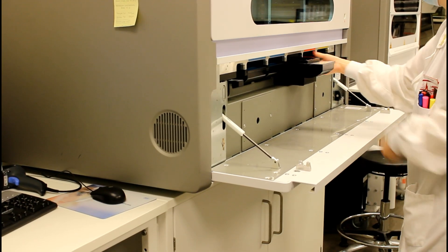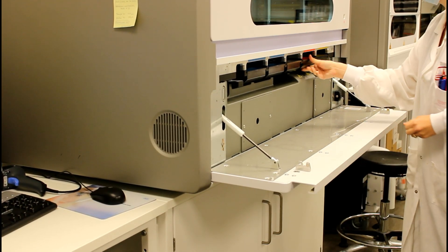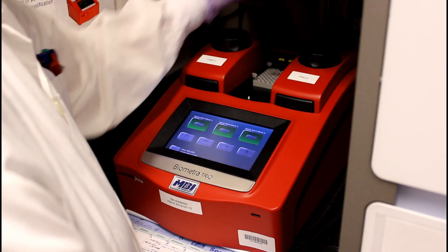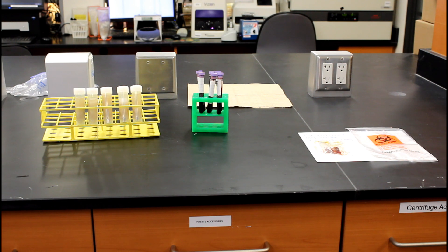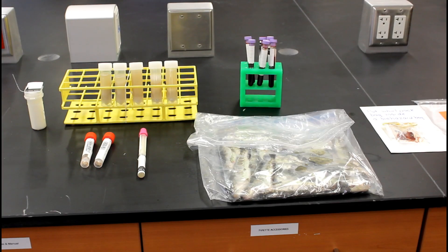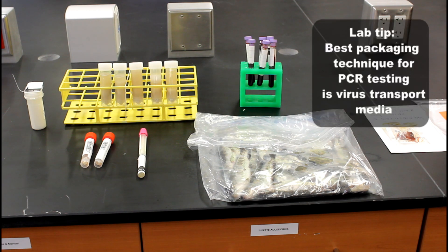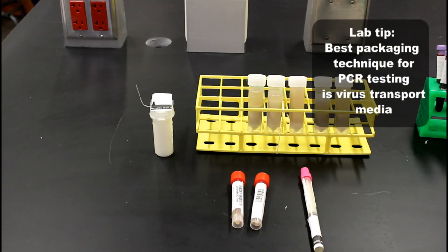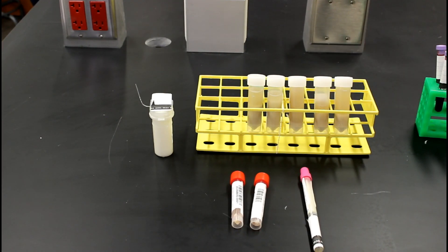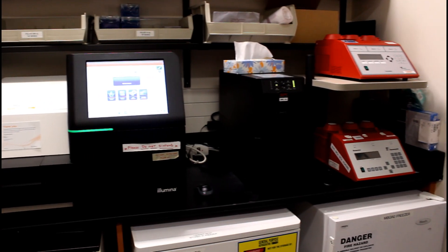In virology we use a lot of PCR to make identifications on the samples you send in. Sample submission is important here as well. PCR can be done on various substrates: swabs, fluid, or tissue. Please note that the best packaging and sampling technique for PCR is to use virus transport media. A regular bacteriology swab put in a red top tube is next best. For PCR, don't put that swab back in the bacteriology gel media.